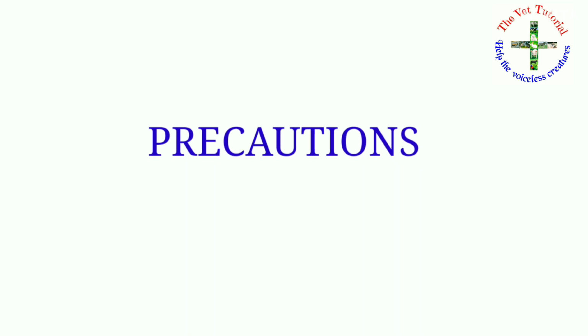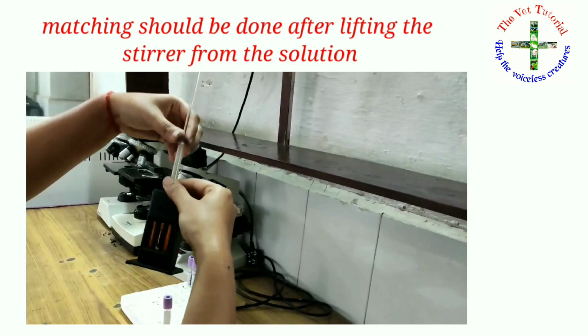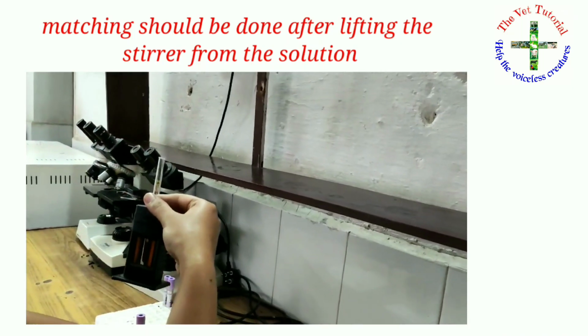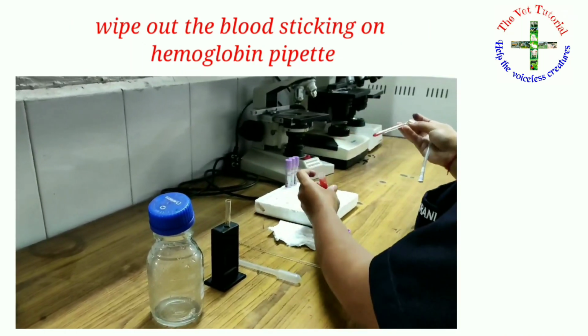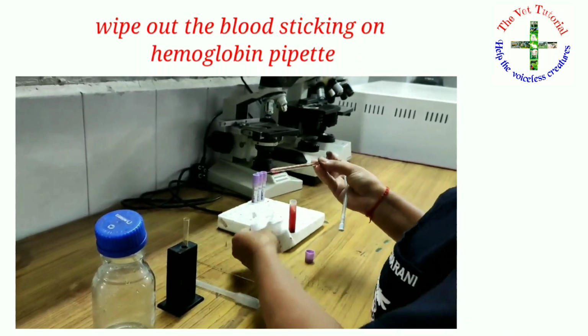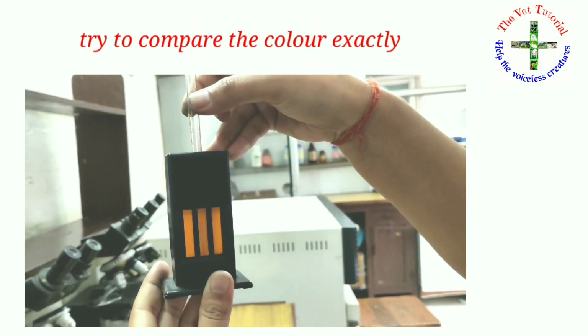Lastly, I want to tell you the mistakes which should be avoided while doing this process. Firstly, all the apparatus must be cleaned properly. Matching of colors should be done after lifting the stirrer from the solution. Then wipe out the blood sticking on the hemoglobin pipette before transferring the blood into the tube and try to compare the color exactly. Then let's see the normal hemoglobin values of different animals, which is in gram per dl.